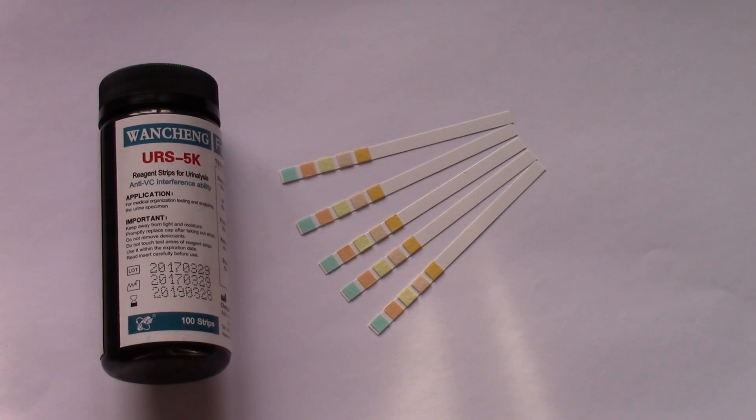Welcome to this product demonstration and user guide for a urine testing strip, in this case the Wang Cheng URS 5K. URS stands for urine reagent strip, a urine testing strip is the common term that means the same thing.